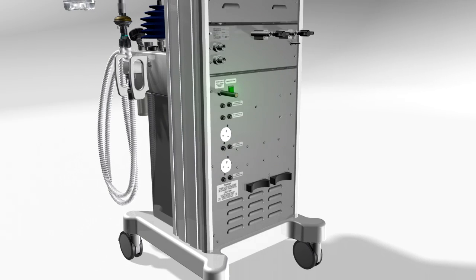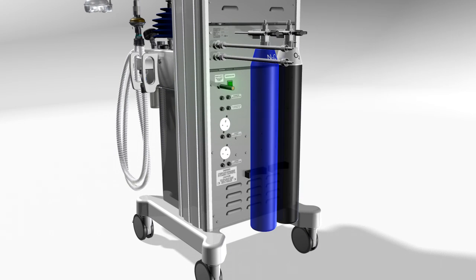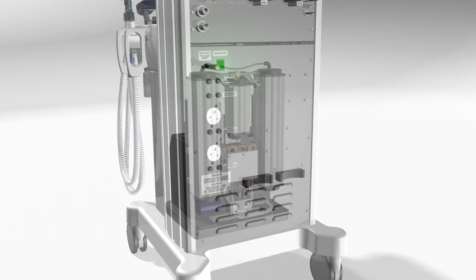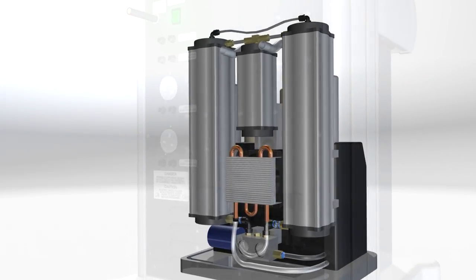The UAM provides several ways to deliver oxygen, including connections for cylinder and pipeline. Most importantly, the machine produces its own oxygen using an integrated concentrator that enriches room air.